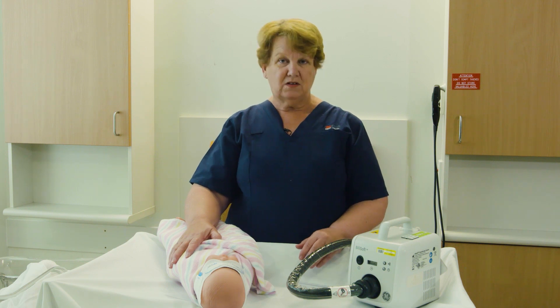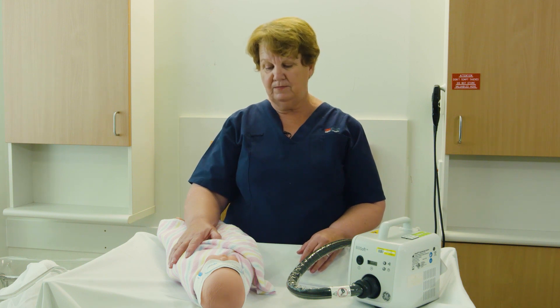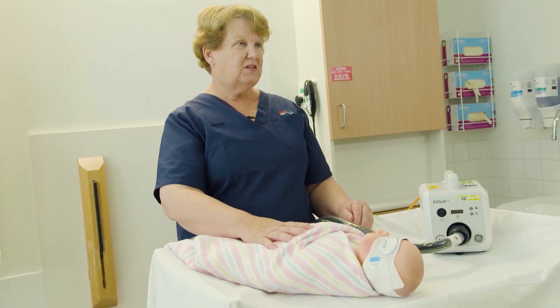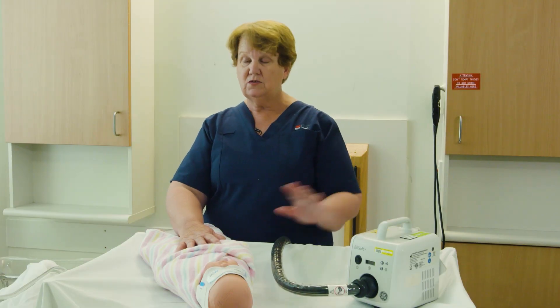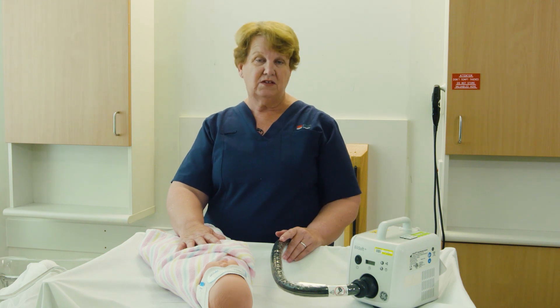This is one of those times that you would be talking to the midwife to make sure we are happy with the levels of temperature you are getting for baby. If your baby's temperature is too hot — that's above 37.4 — you would turn the machine off, strip the baby down, give it a drink, and check the temperature within an hour's time. If the temperature still remained above 37.4, then you need to speak with the midwife again.